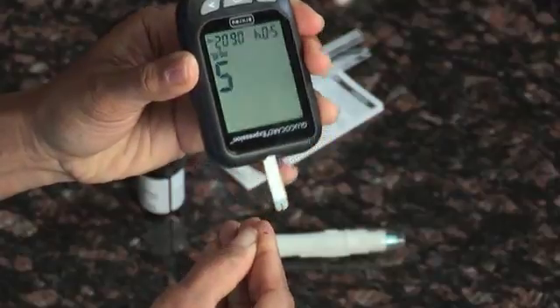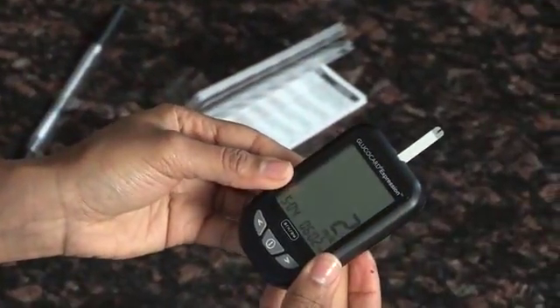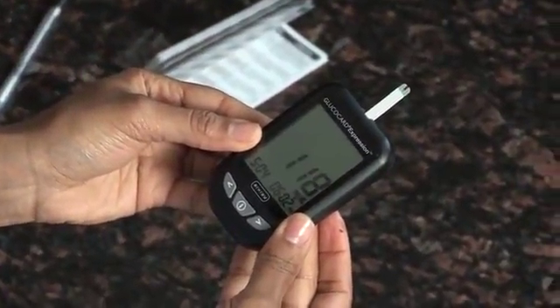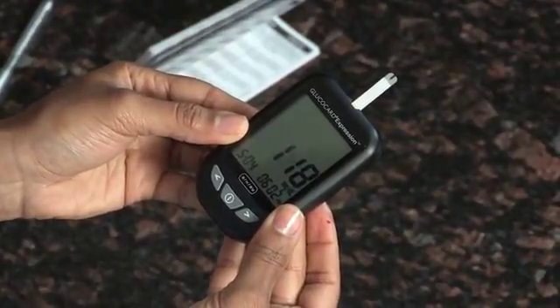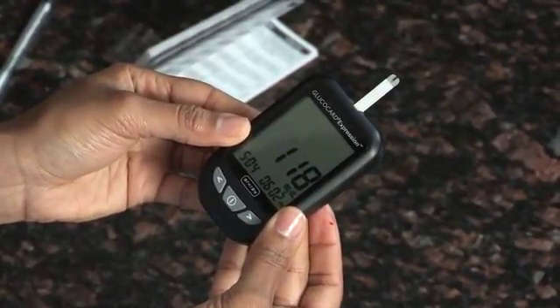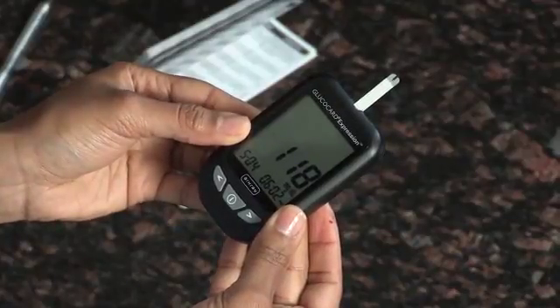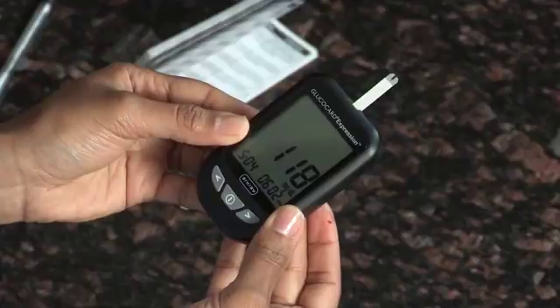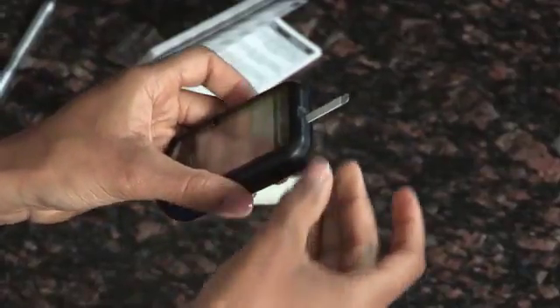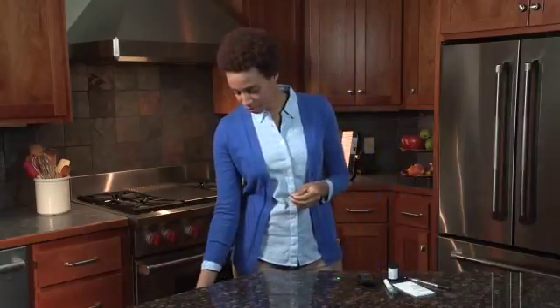Keep the test strip in the blood drop until the meter beeps to indicate the test strip has enough blood. The screen will start to count down. After 6 seconds, your glucose test result will appear on the meter display screen and announced verbally if you have the voice feature turned on. Your test result will be automatically stored into the meter memory. Remove the used test strip and discard in the proper waste container. The meter will automatically shut off.